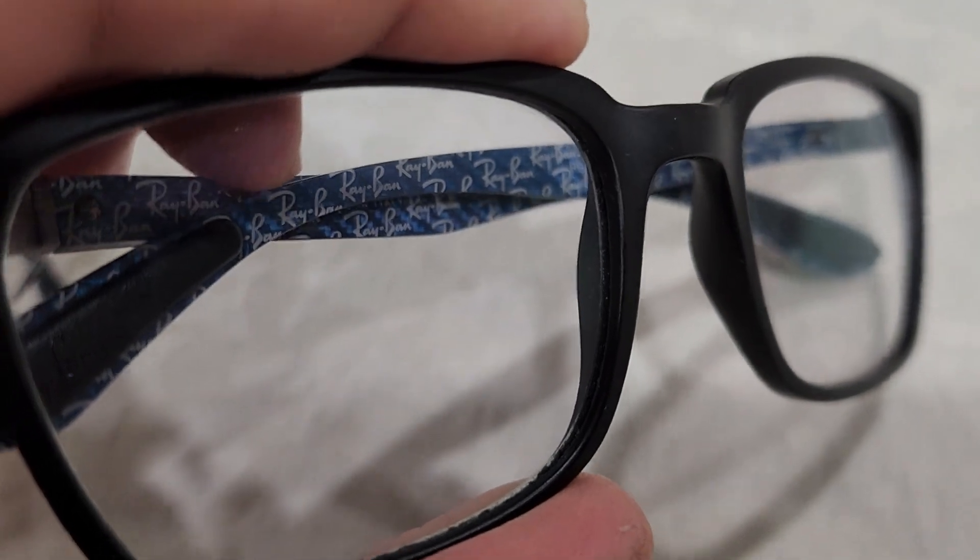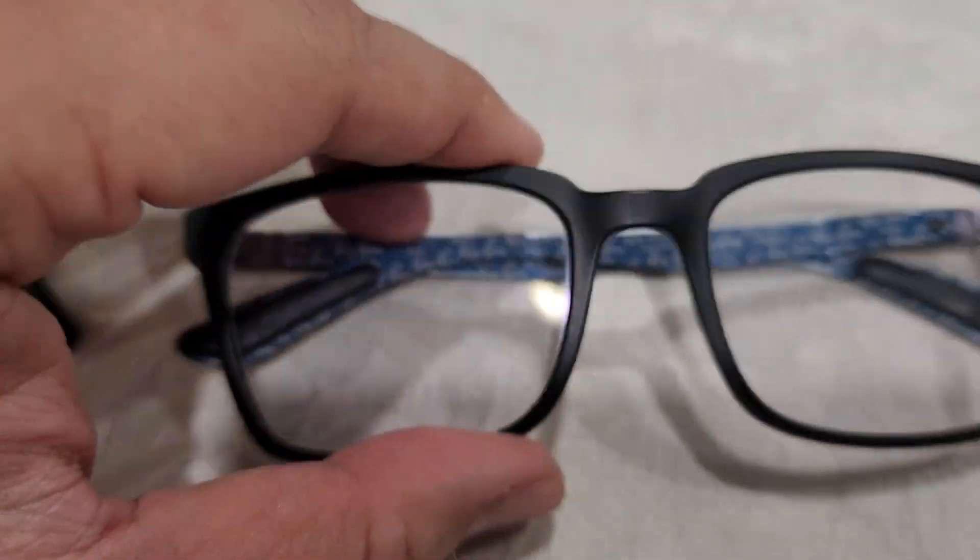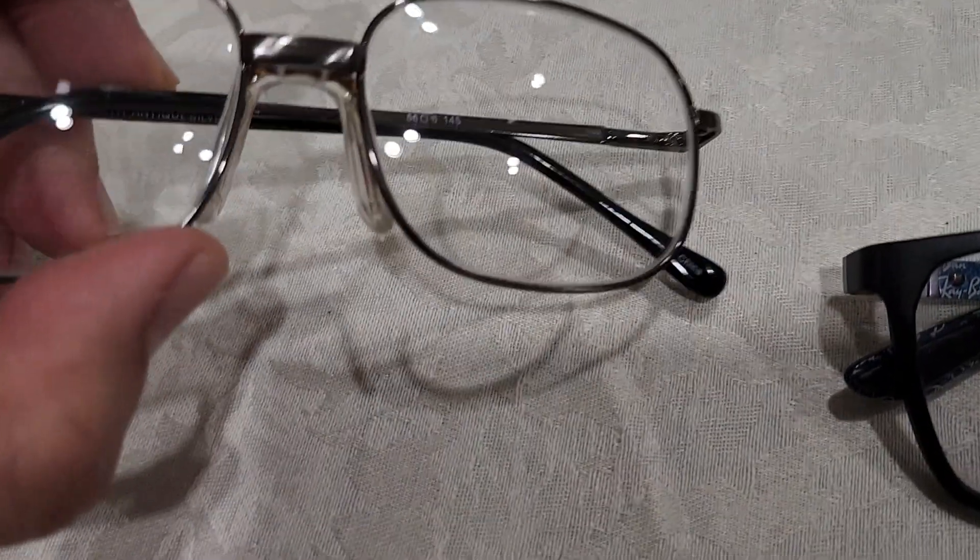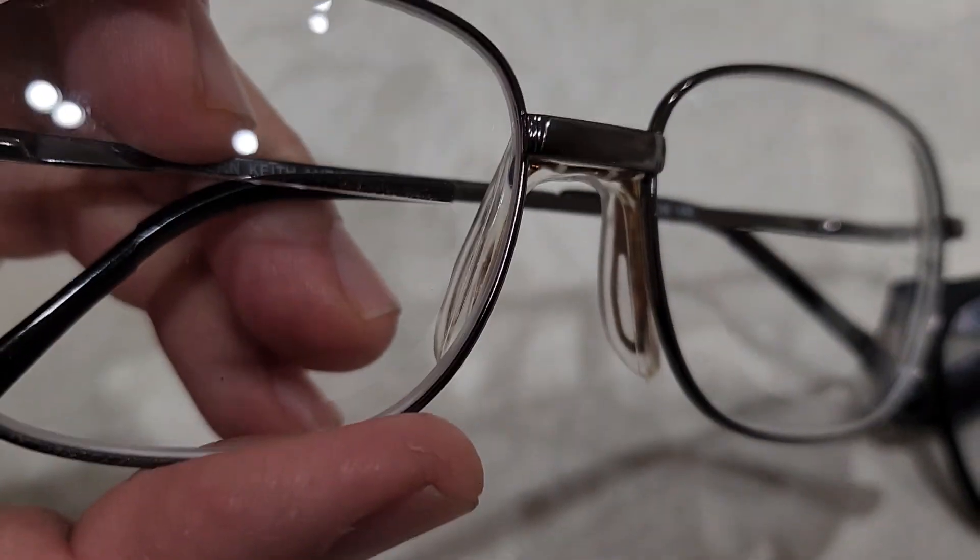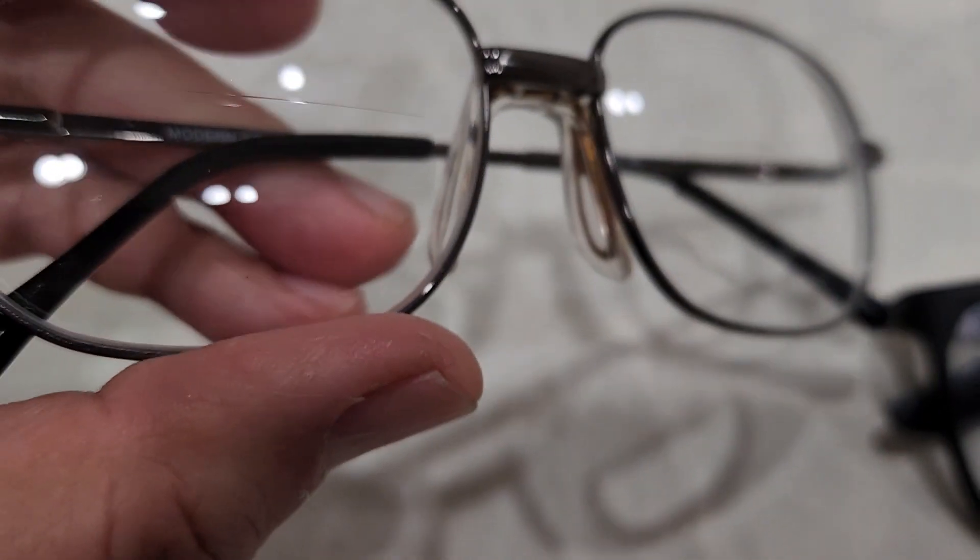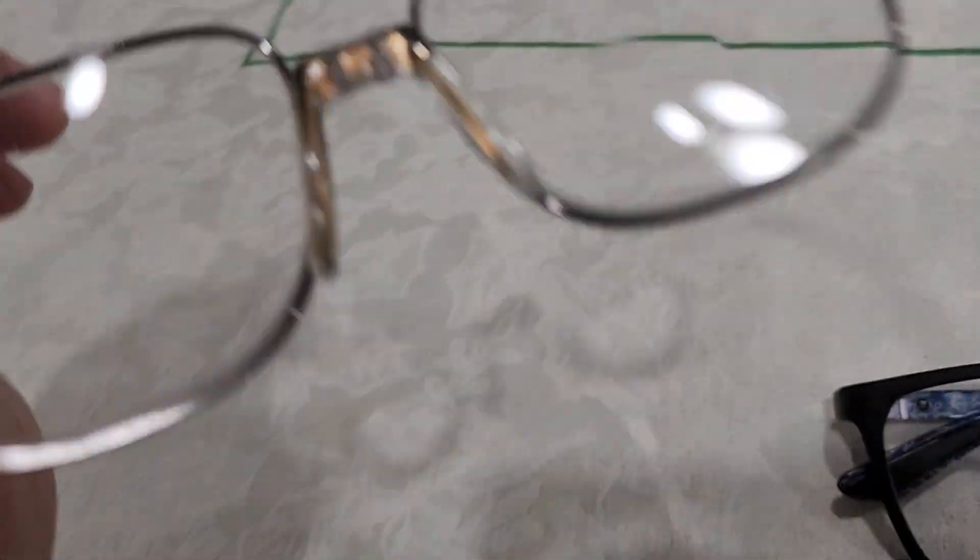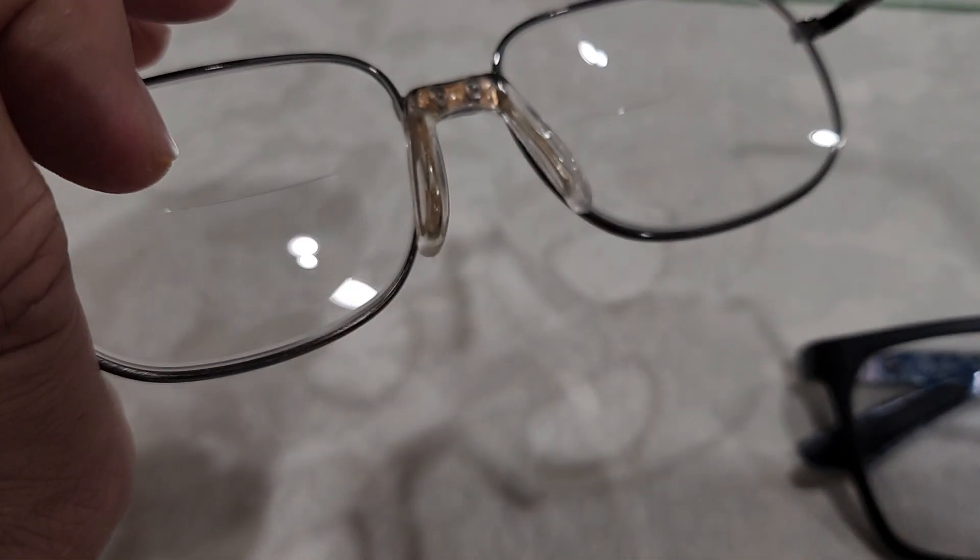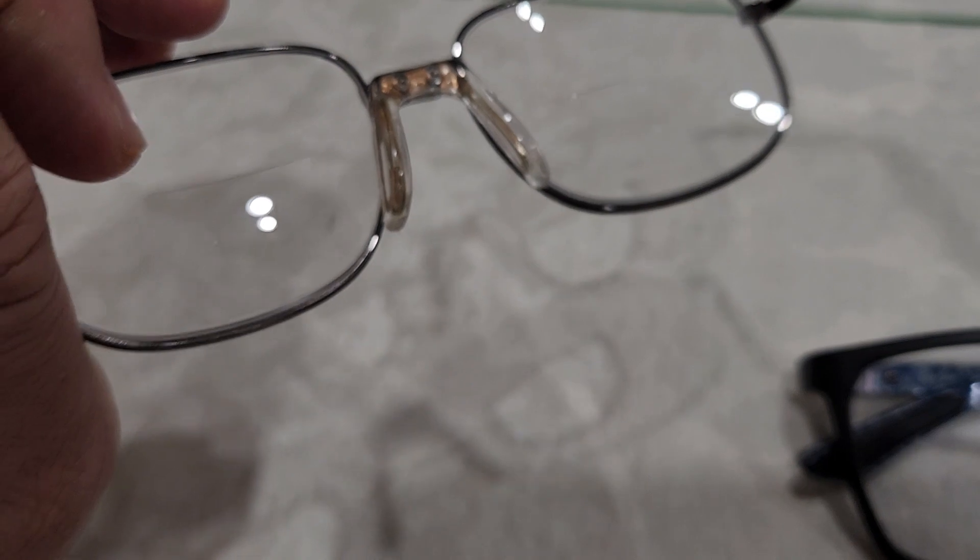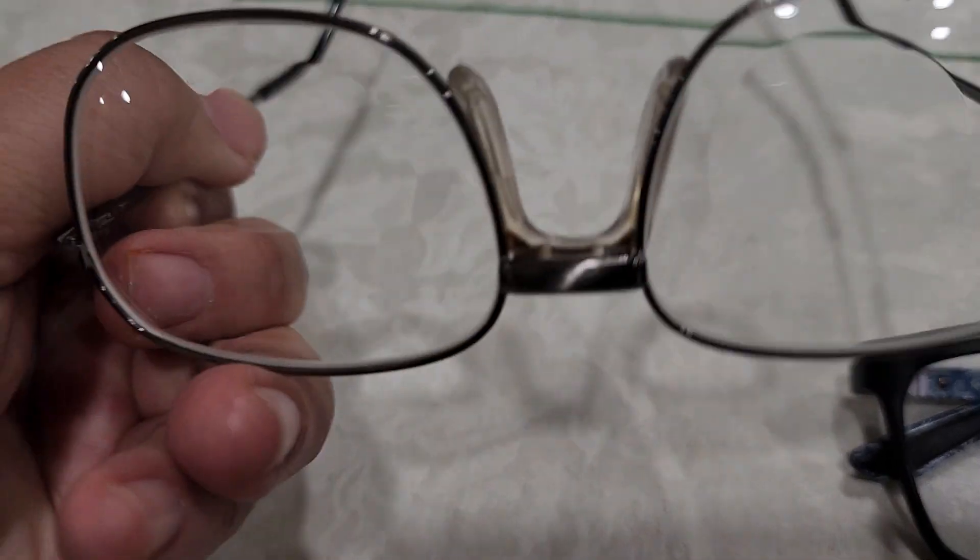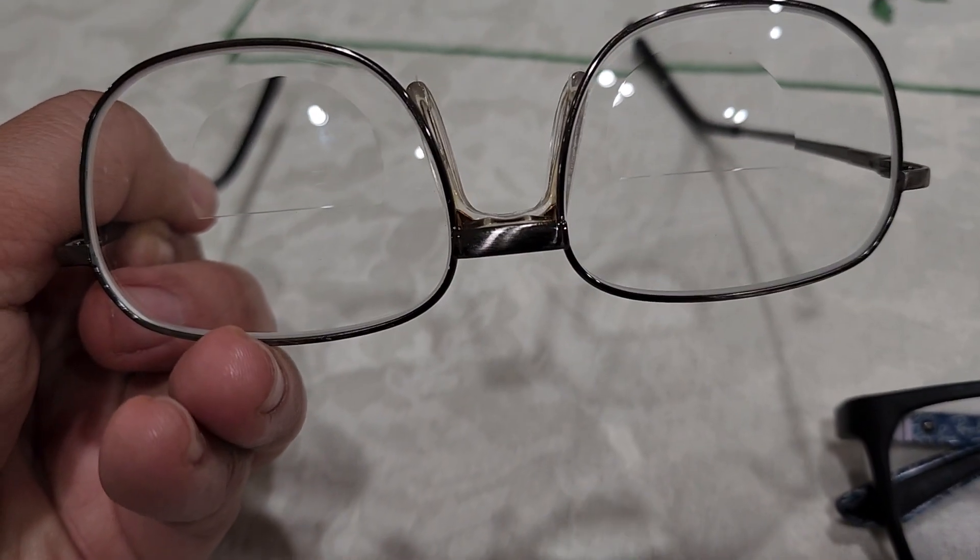Now I'm getting this one because my insurance only covered this. But if you look here, you see that line right there? Let me open this up a little bit so you can see it better. See that little area that's kind of like towards the bottom?